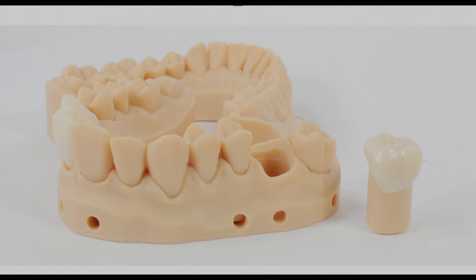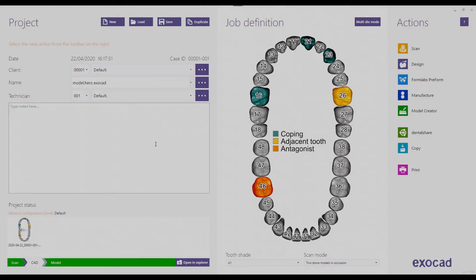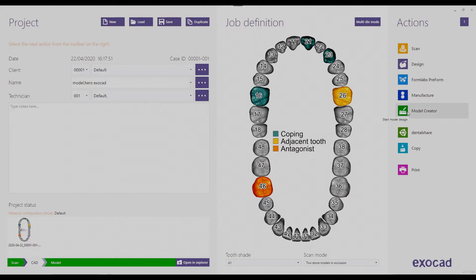Now we are going to jump into the order setup. We are going into DentalDB and setting up an order that is already done here. You don't need to set up any material or preset for the Model Creator module because this will be handled by the module itself later.